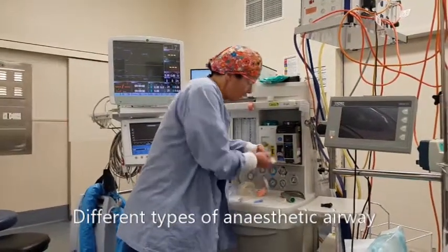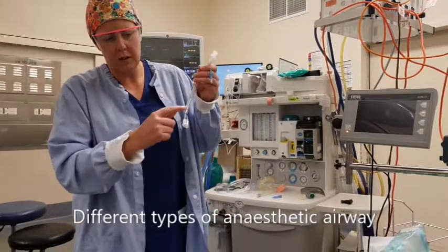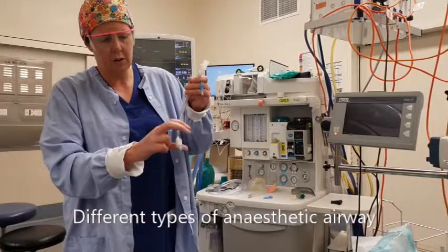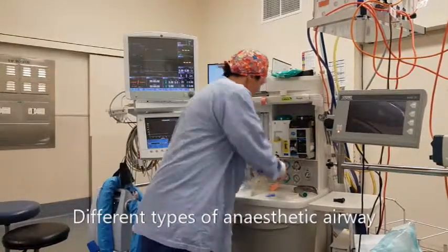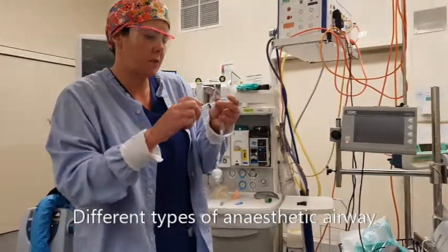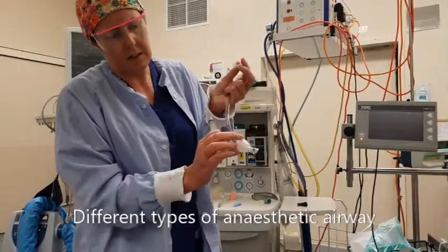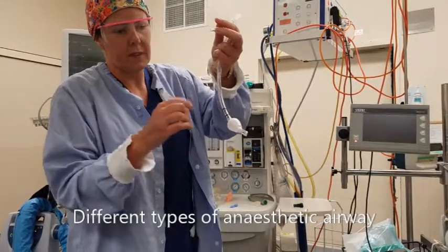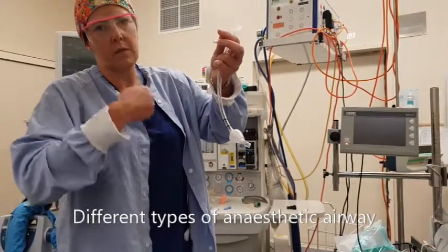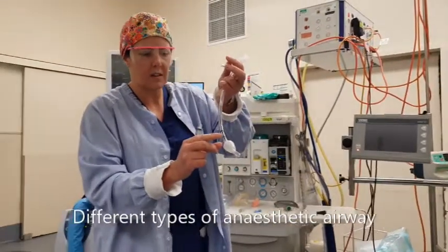The endotracheal tube goes through your vocal cords. The key advantage is that it secures your airway — we inflate a small cuff once it's positioned down in your lungs, which creates a seal that prevents anything from coming up from your stomach and going down into your lungs. So this airway device protects your lungs.